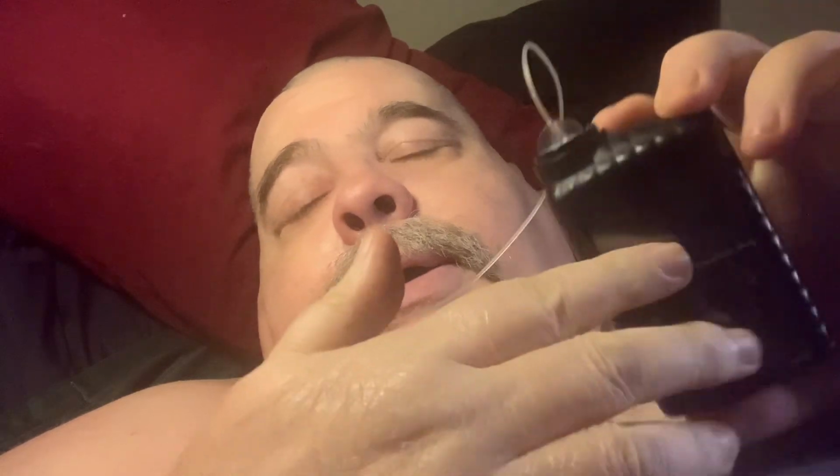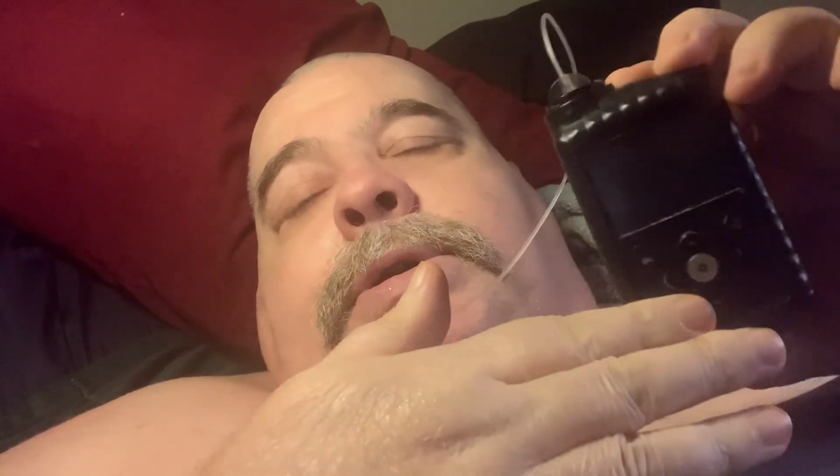And at that time in my life, it wasn't a good feature. I had always been with Medtronic, so the Minimed seemed to be the best pump choice for me. I knew how the pump worked, so we were aiming for a good thing.